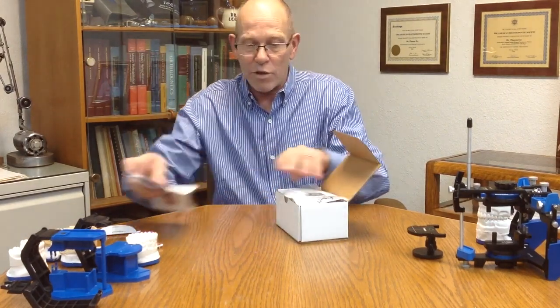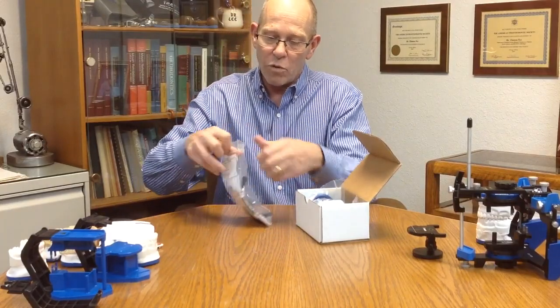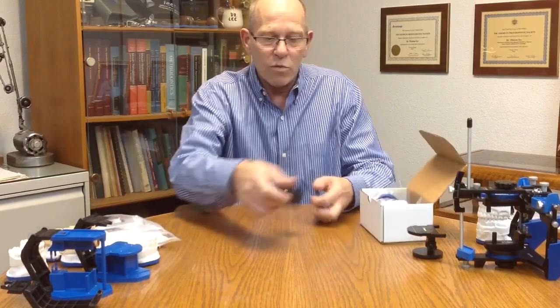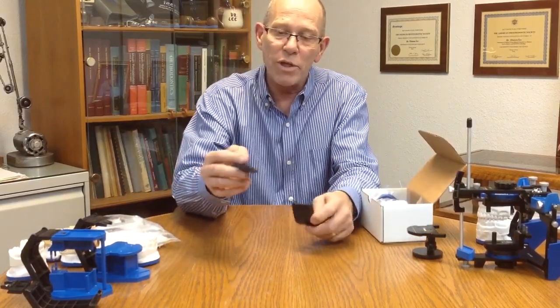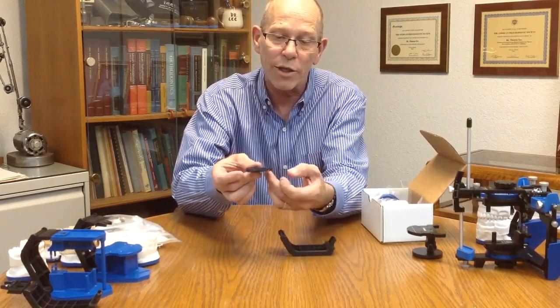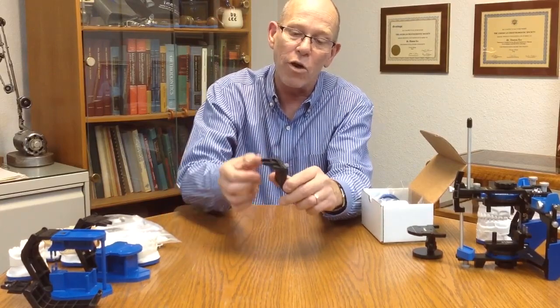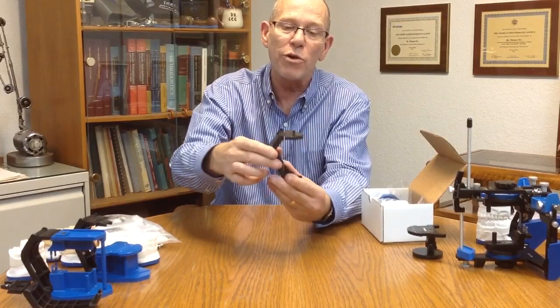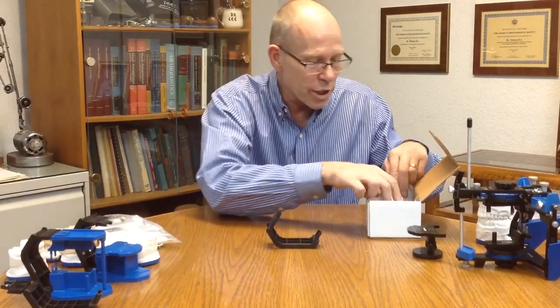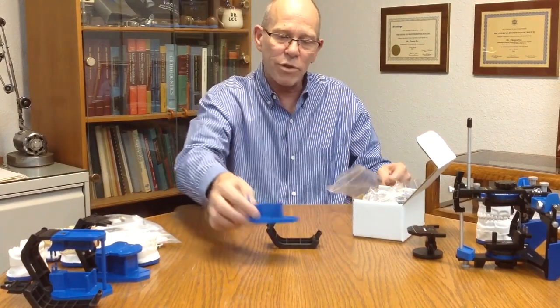Then we'll also have the PAL articulator that comes with the system. We'll open that up and we have two pieces there, the lower piece and the upper piece. The upper piece, we want to have in an open position where the channel here is in the downward position. Then we can snap that right onto the lower, and rotate that forward into a more normal position.